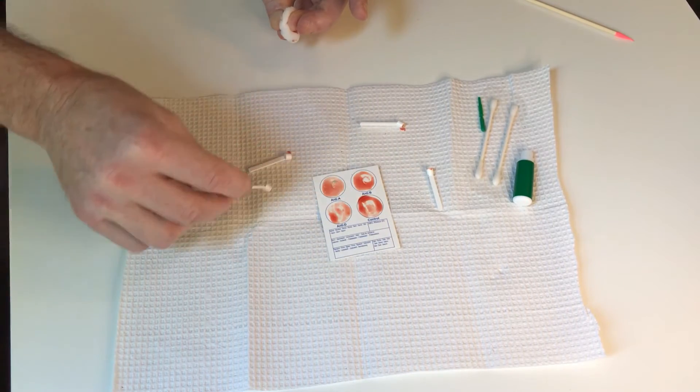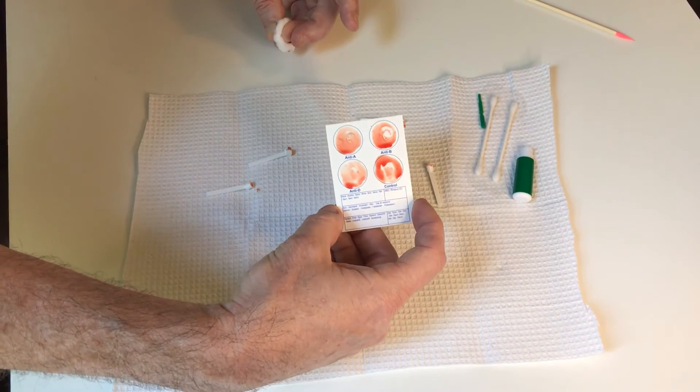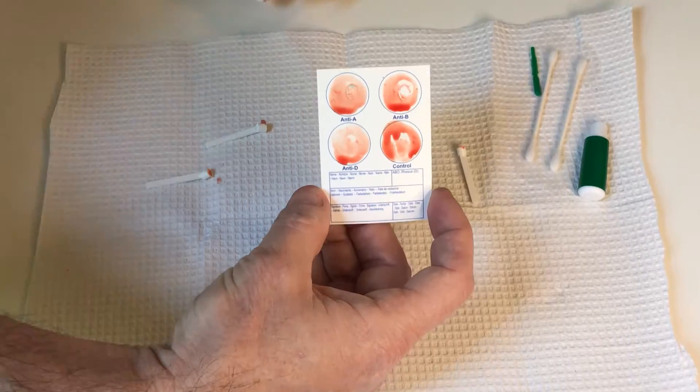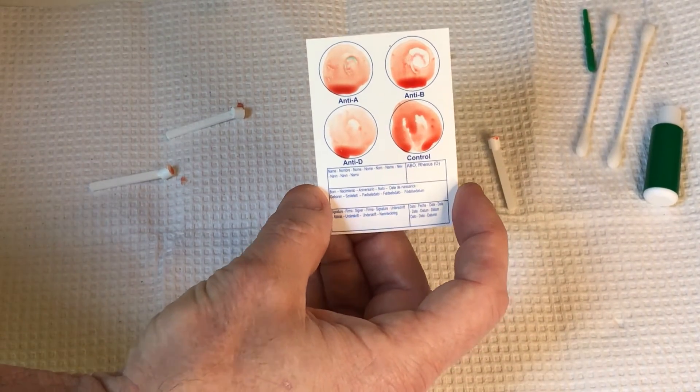All right, so now what I got to do is tip this card. So I'm going to tip it up for about ten seconds this way. Tip it down for about ten seconds.